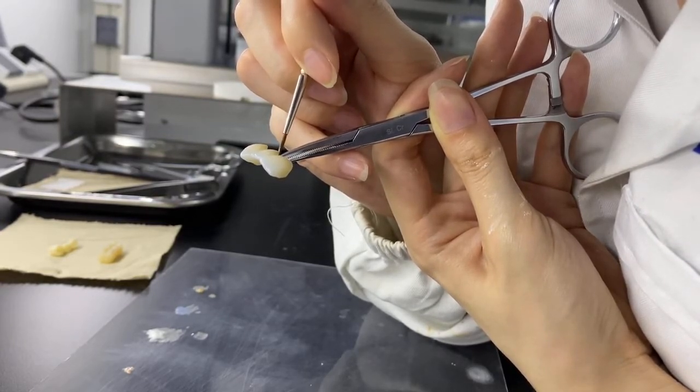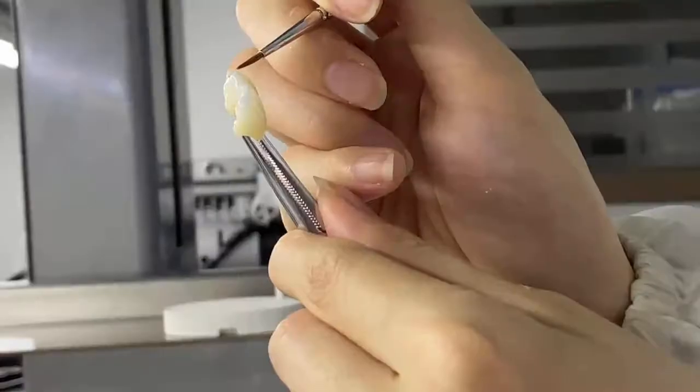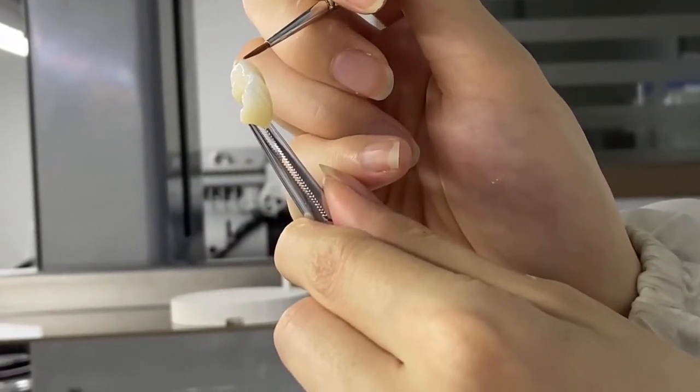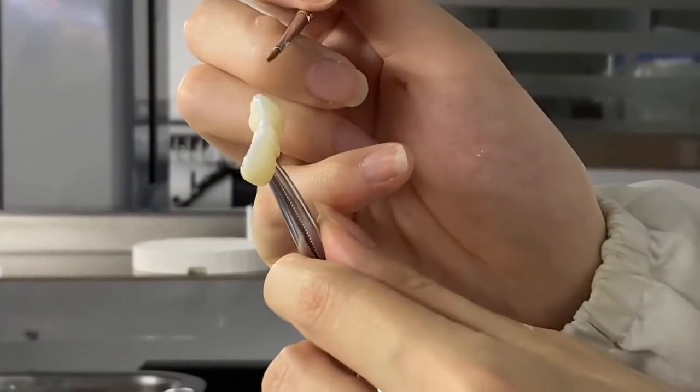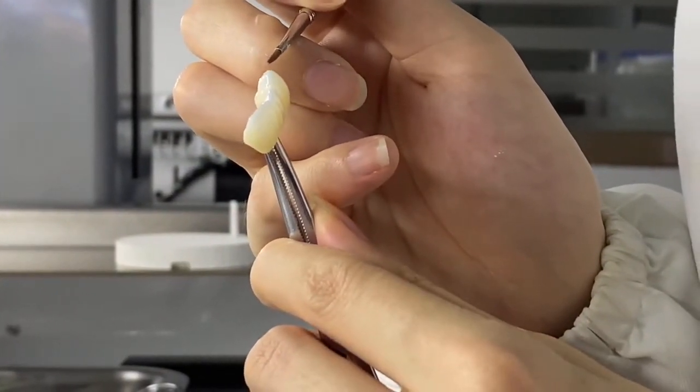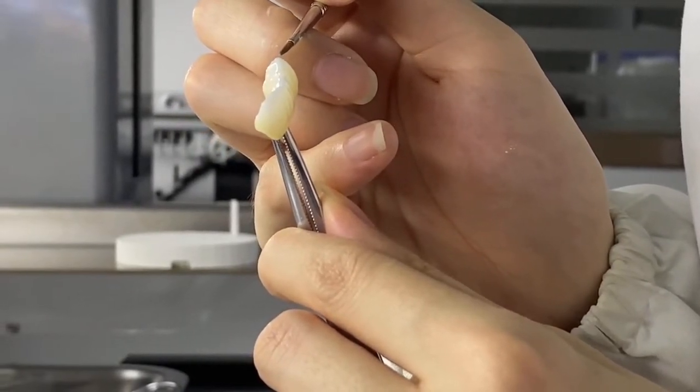In studies it has been reported that translucency is affected by the layer's thickness and by the grain size. Hence we use some blue glaze on incisal to attain more translucency performance.